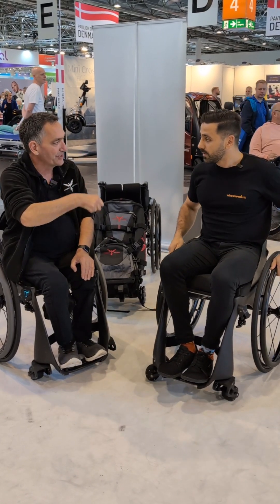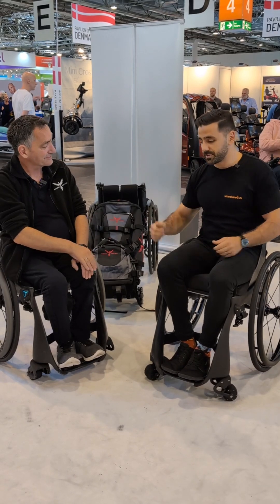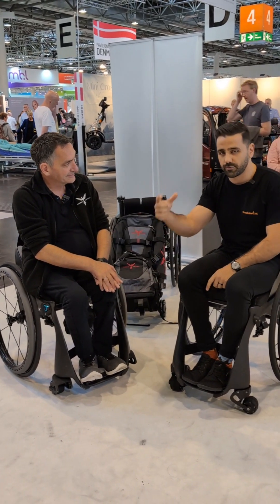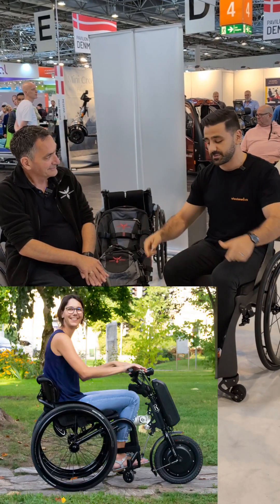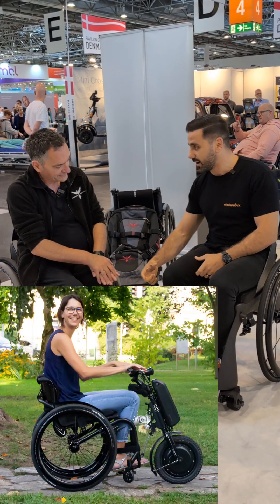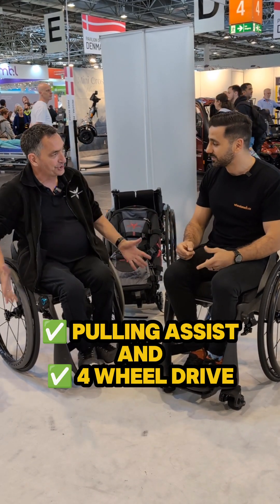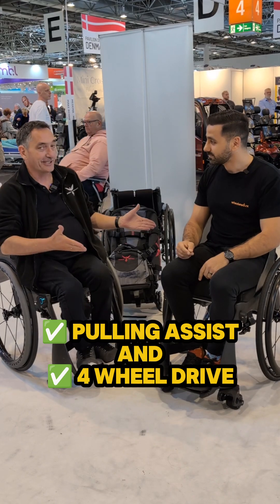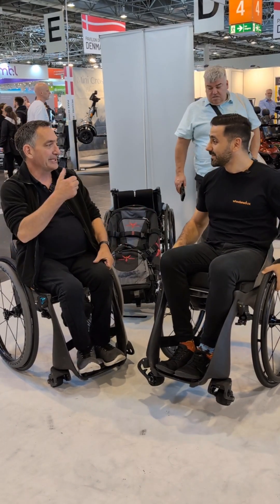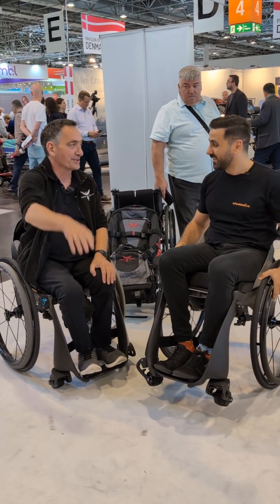They've got their own drive all the time, so whatever you hit, they just keep going. With joystick, push-rim and rear attachment, you're always going to have that limitation of the caster going over an obstacle. But now that you've made the front wheel powered, you're pulling and pushing — so your six and a half kilogram chair has got four-wheel drive. You can go over gravel, thick grass, deep carpet like all the hotels have. You just turn up the power and it goes right through it.